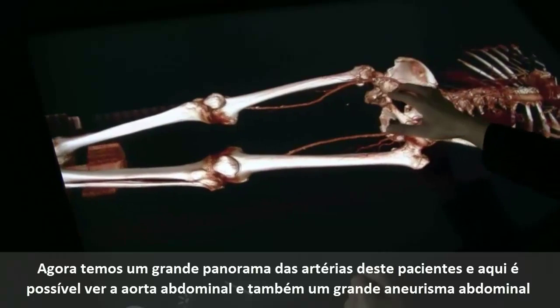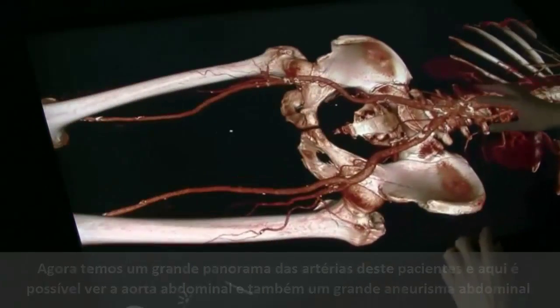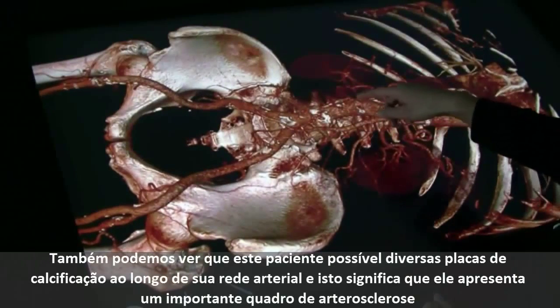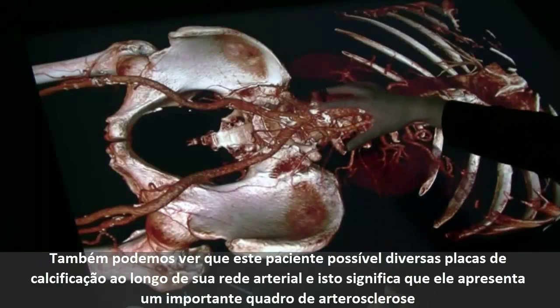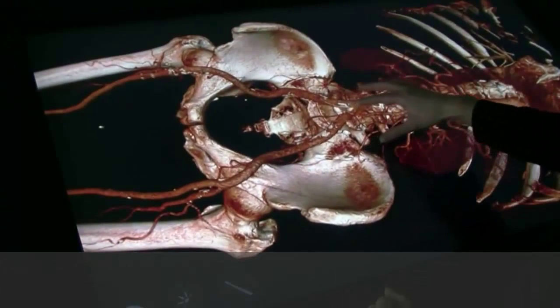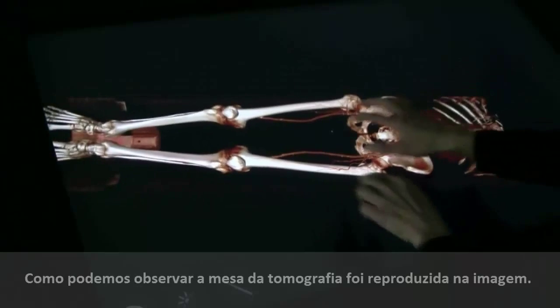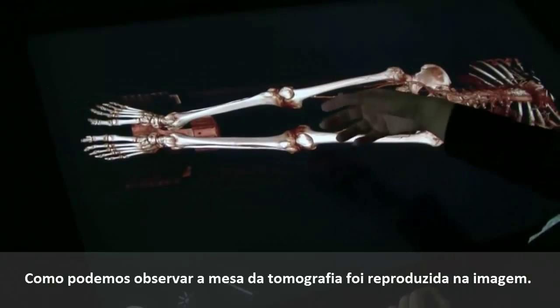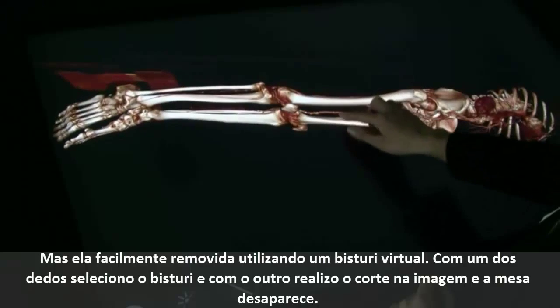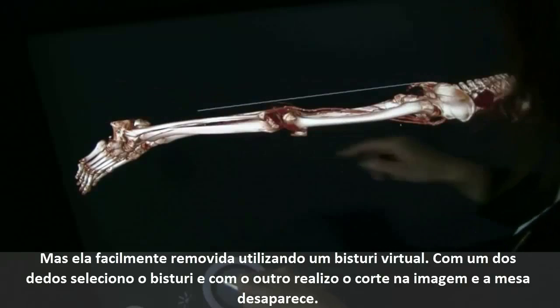Now we have an overview over the arteries. Here you see the abdominal aorta with an aortic aneurysm. What we can also see is that this patient has calcified plaque, and this means that the patient suffers from atherosclerotic arteries. As you can see, the bed from the CT scan is visible here. But that can easily be removed by using something that is called a clip plane. I just drag with my finger and the bed is gone.